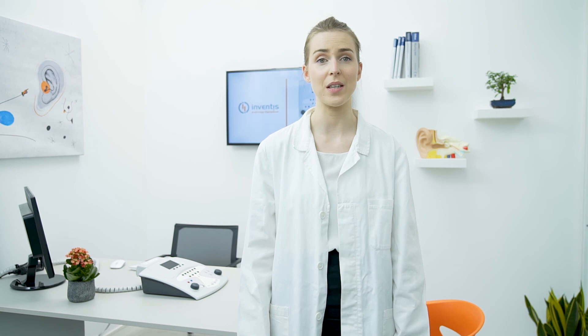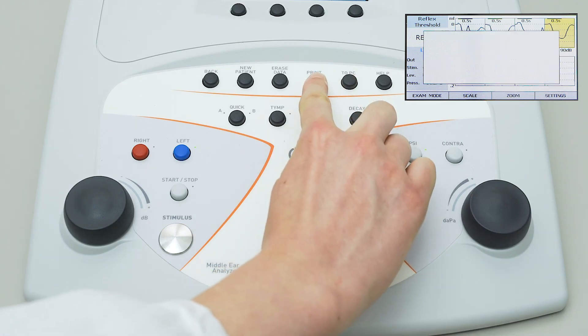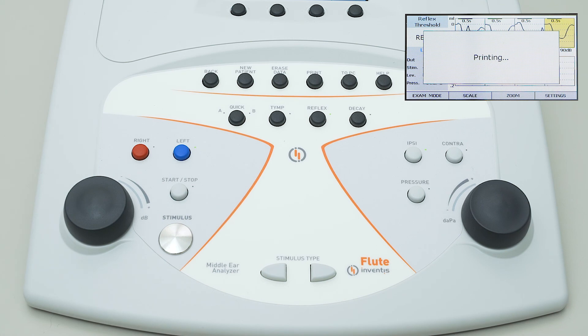In the case that your Flute has a built-in thermal printer, it is possible to generate a printout of the current examination by simply pressing the print button from the exam screen. By pressing the same button from the Flute main menu, all tests conducted will be printed.